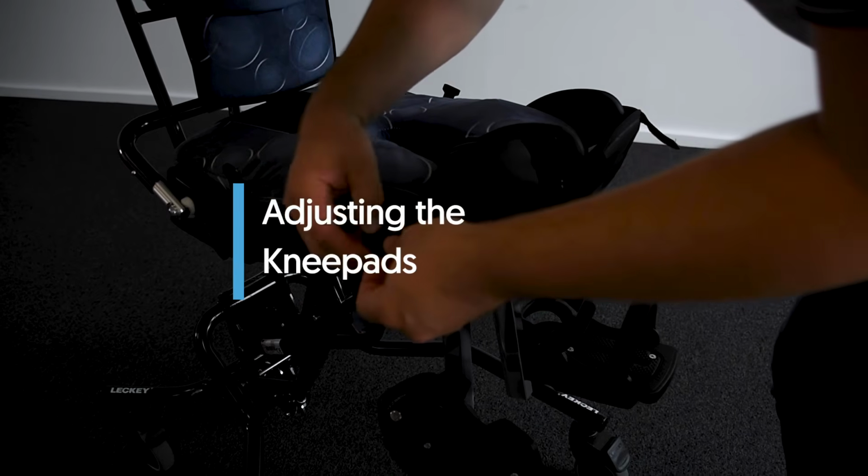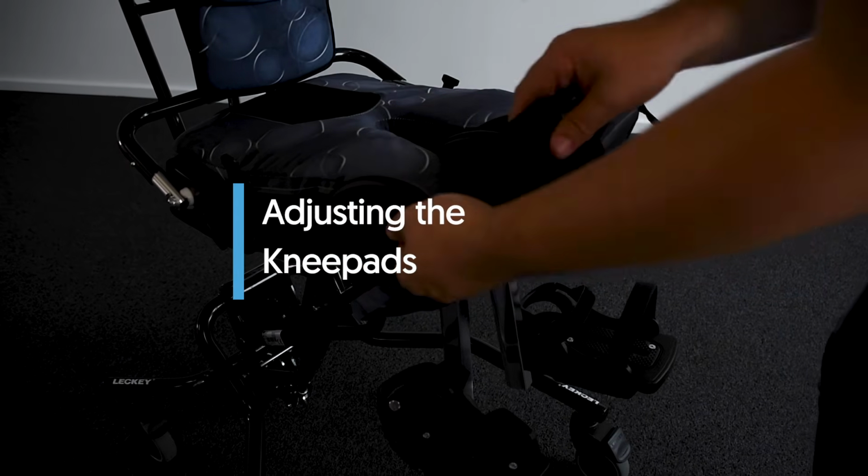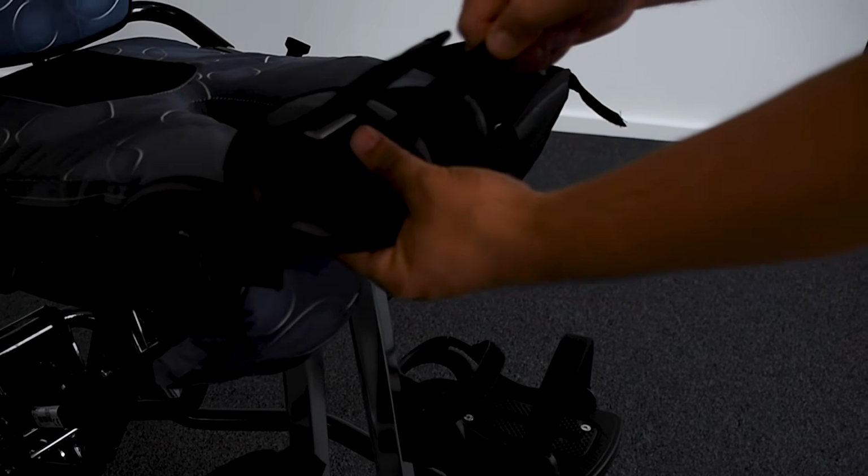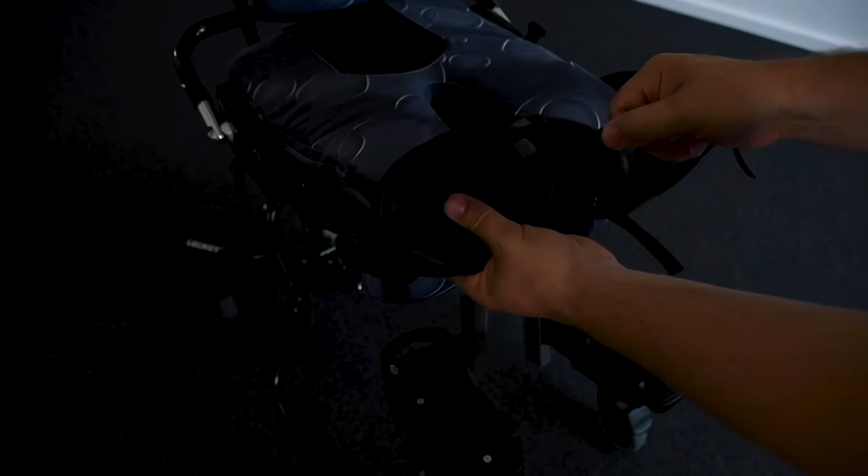Adjusting the knee pads. To adjust the knee pads, lift the front cover, adjust the Velcro straps to the desired length and reposition in place. To remove, unclip the snap fastener on one side.